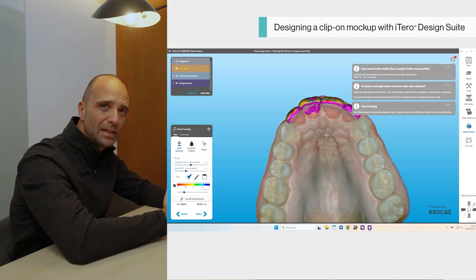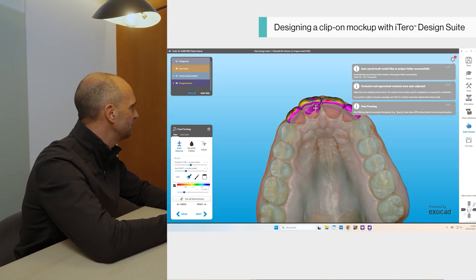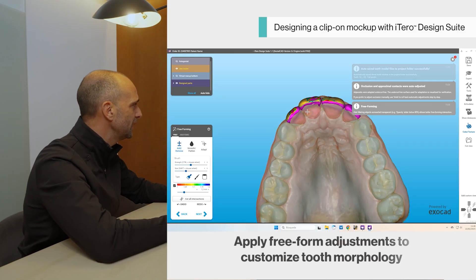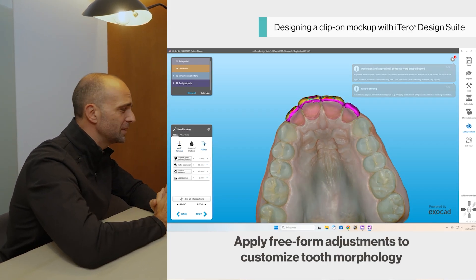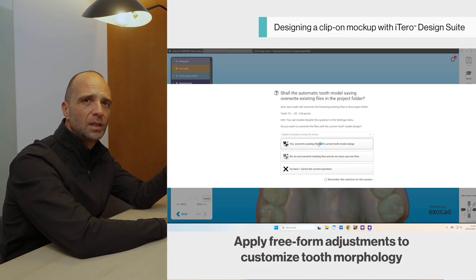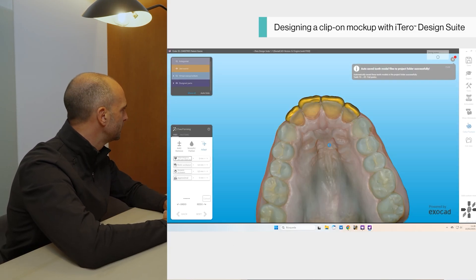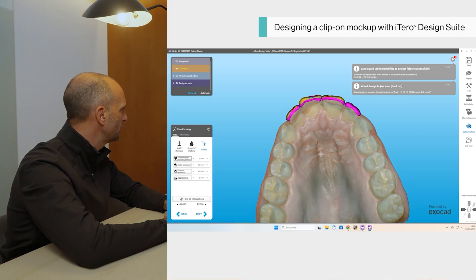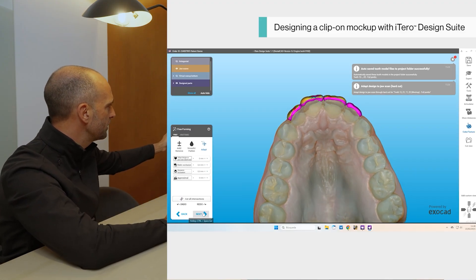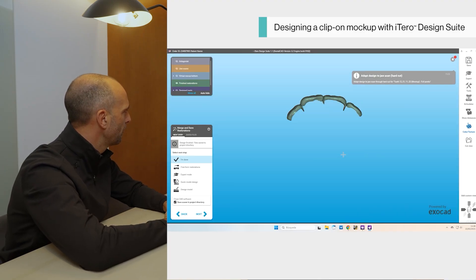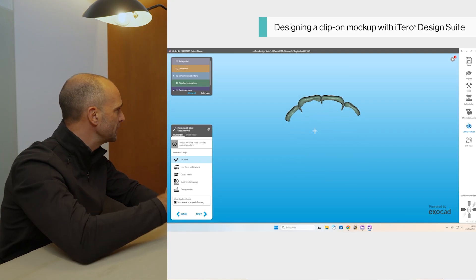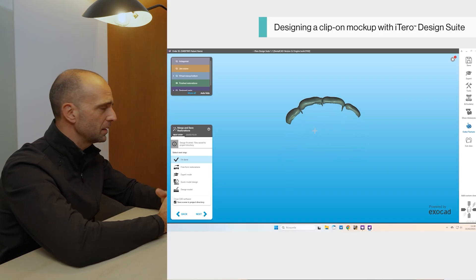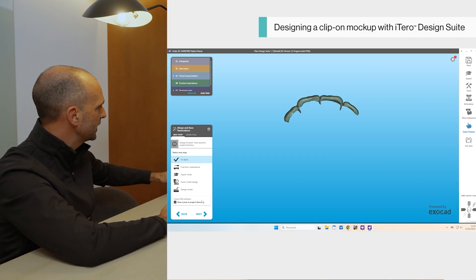Everything is adaptive — it's not going to stay long in the patient's mouth. You can remove some of the extra material because what we want in this case is a kind of snap-on smile, adapted just to check with the patient the shapes, forms, and possible modifications of the anatomy. We can continue modifying whatever we need; the software will adapt all the details and you can add free-form anatomic shaping. You can see how the software has already separated from the model the shell that will be ready to import into our software to be printed and manufactured in-house.